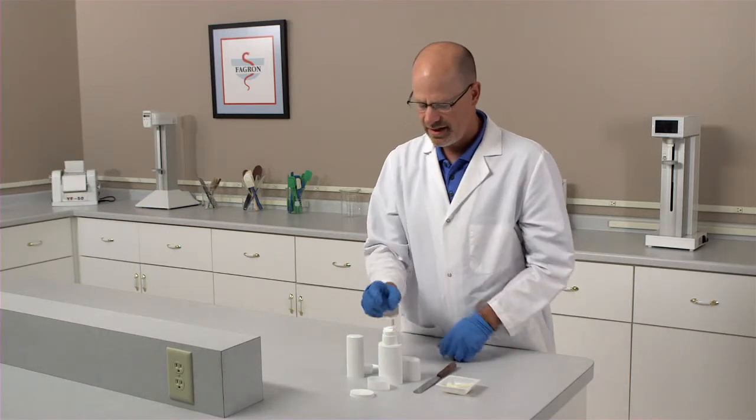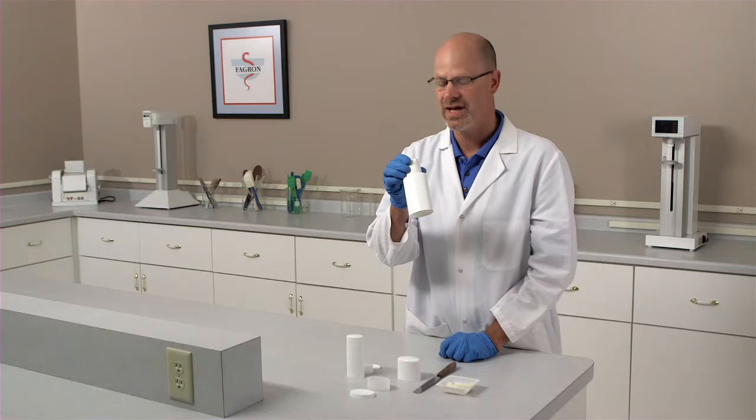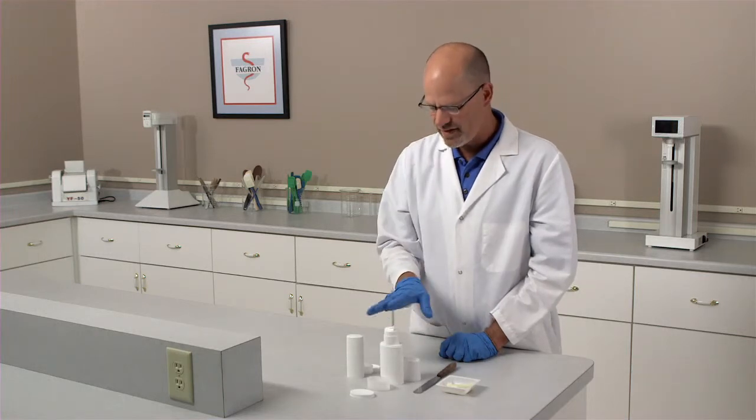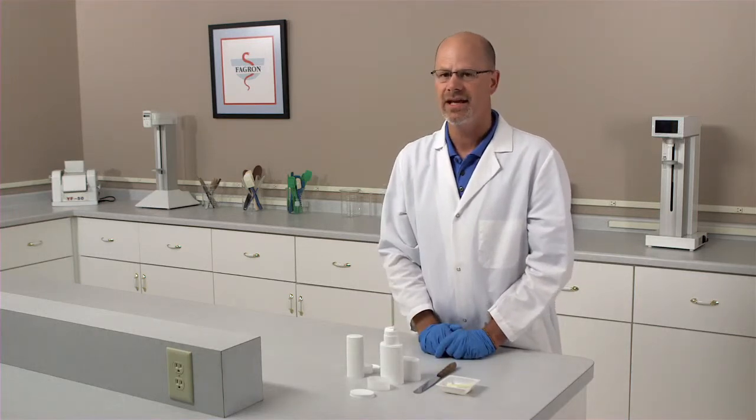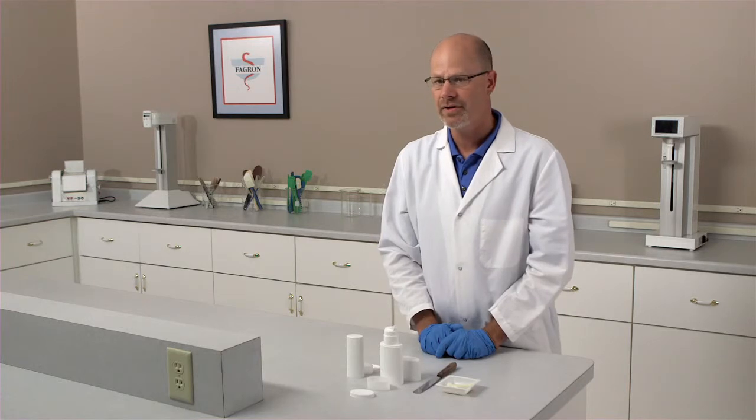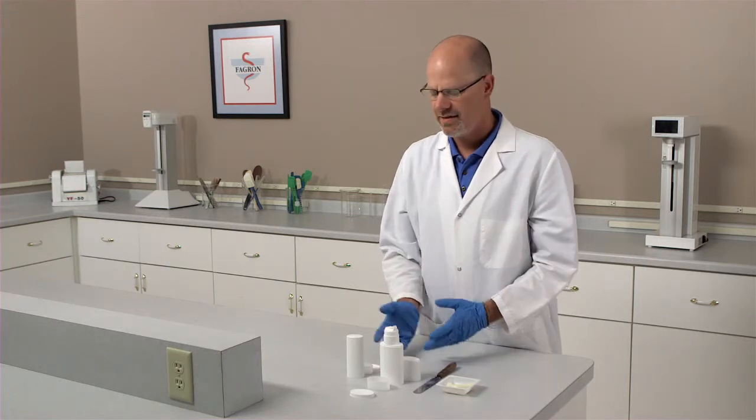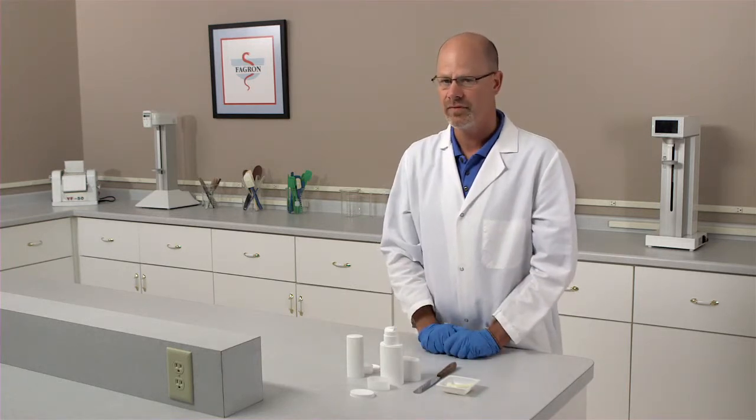This also comes in a 100 gram or 100 ml size. The important feature of this device is if you're dispensing a preparation that's a little thicker or a little heavier viscosity, this device might be suitable for your dispensing.